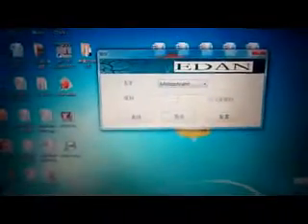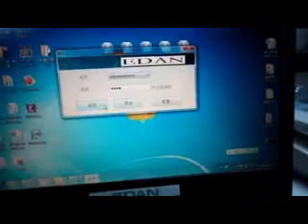We run it and input password EDAN. This software right now is in Chinese version because my operating system is in Chinese. It recognized the Chinese automatically. I can change it into English, but it doesn't matter. Here we can input patient information.